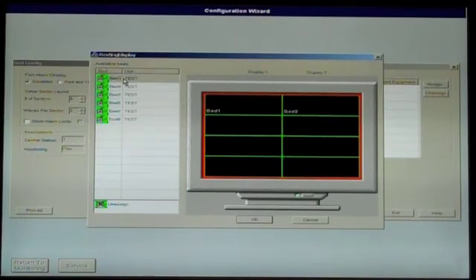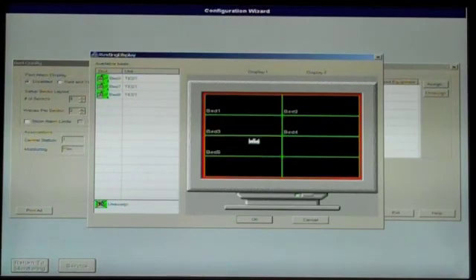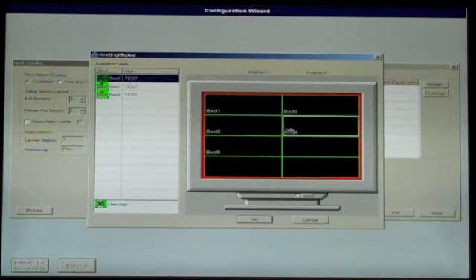Once all beds are assigned, click OK followed by Next to continue.